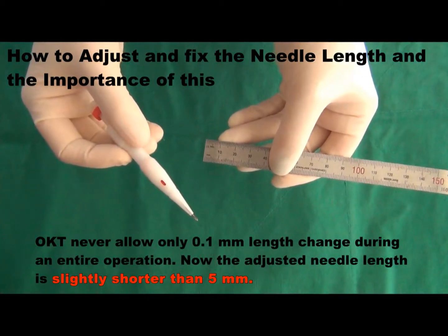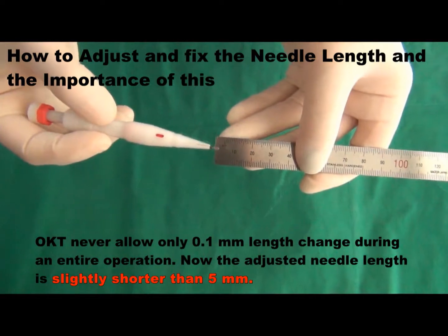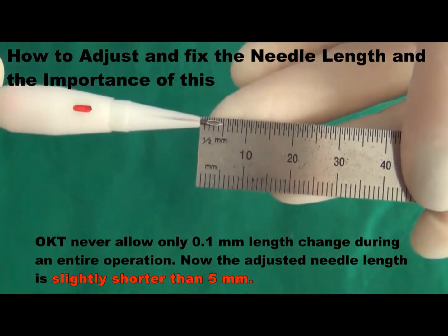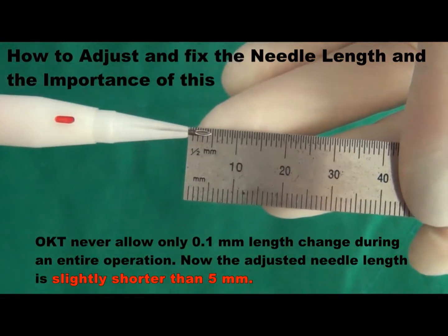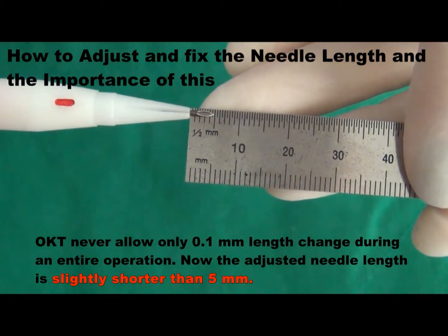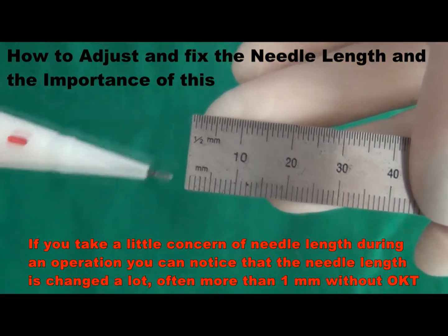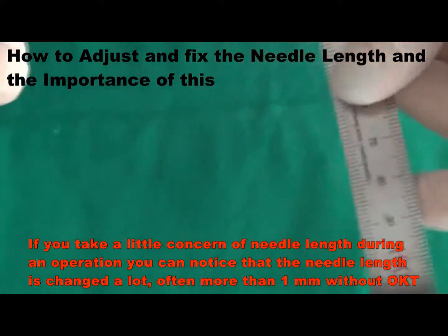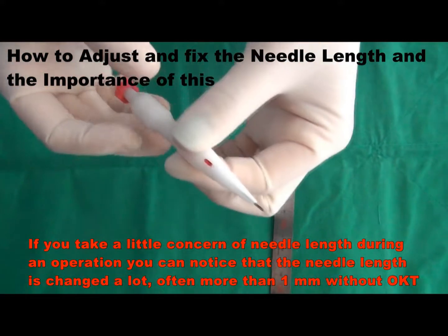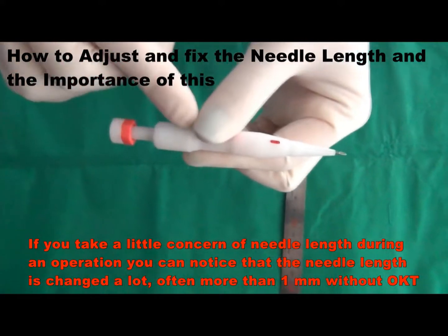OKT never allows even a 0.1 mm length change during an entire operation. Now the adjusted needle length is slightly shorter than 5 mm. If you pay little attention to needle length during an operation, you can notice that the needle length can change a lot — often more than 1 mm — without OKT.